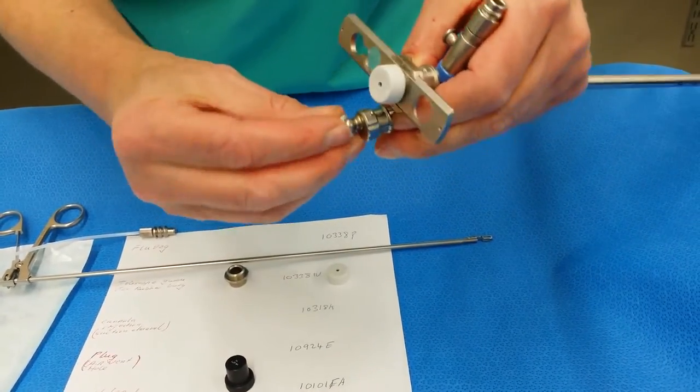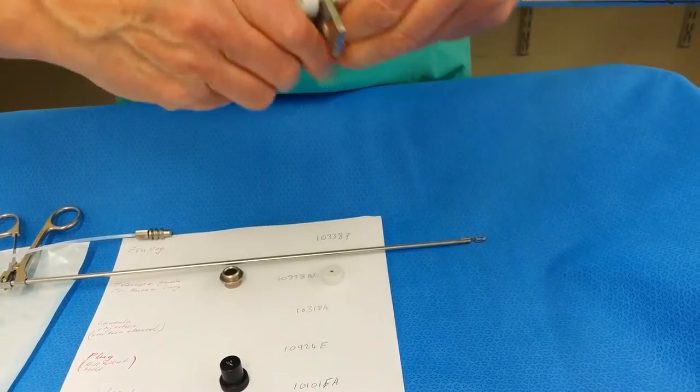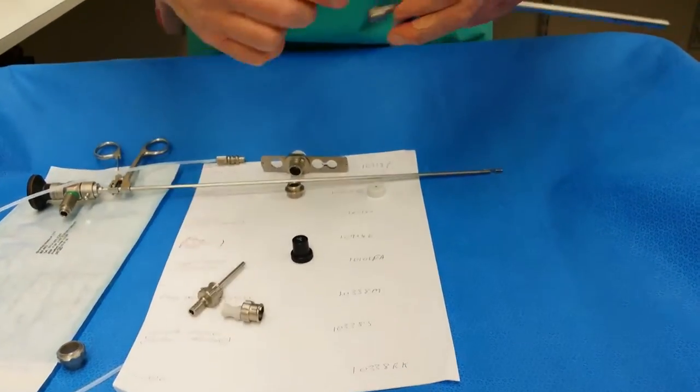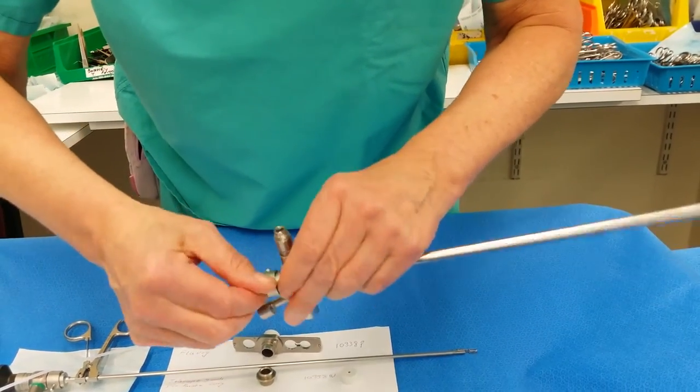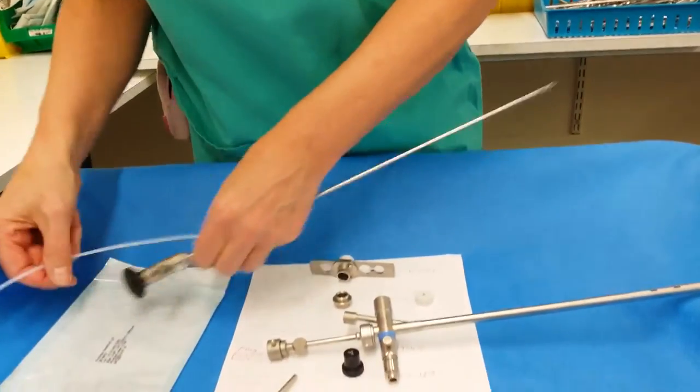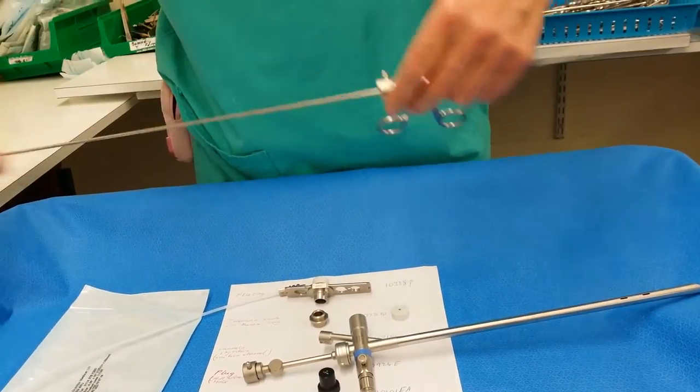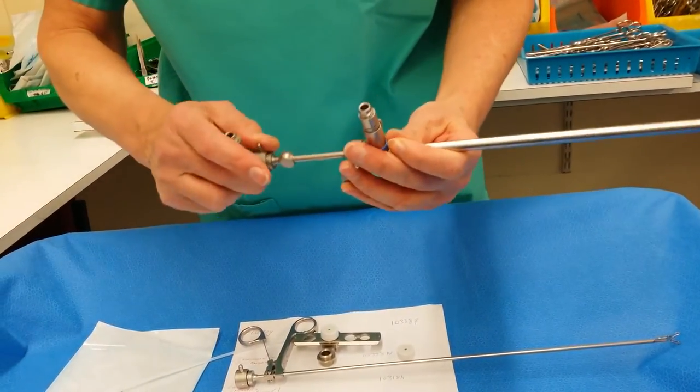You've got a little connector here if the surgeon prefers to use it like that. You've also got a bridge that just fits on, it just slides on like that. Through that, you can put the scope directly.